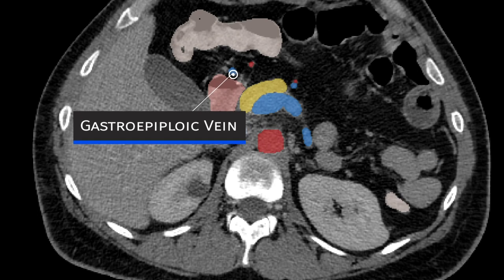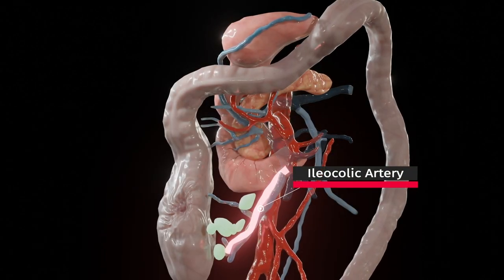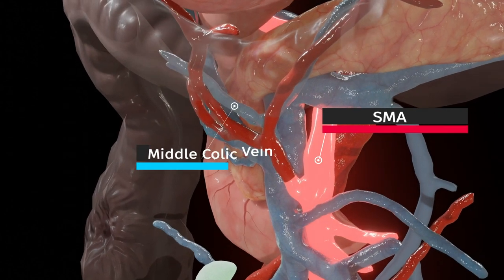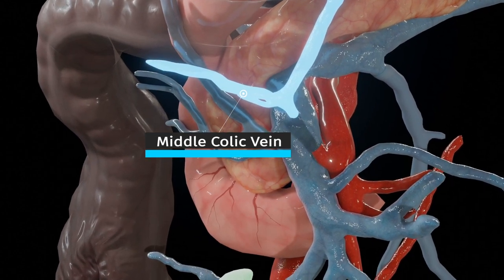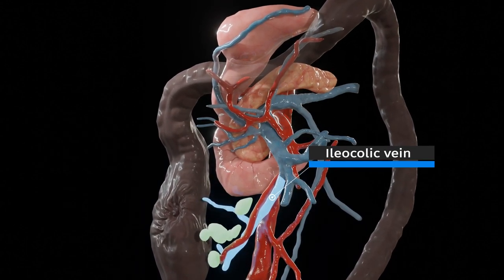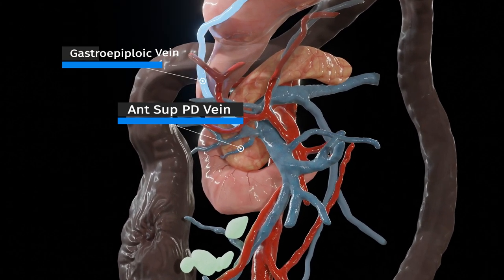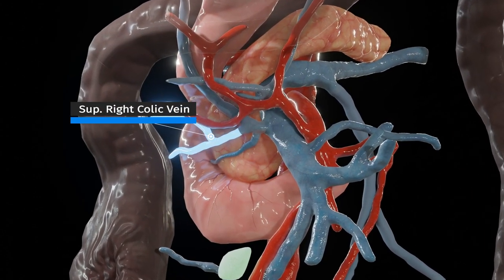However, even with such a systematic approach, extracting the 3D relationship of the mesenteric vessels can be challenging even for an experienced surgeon. 3D reconstructions derived from patient imaging may therefore be a useful adjunct to the preoperative planning process. Patient-specific models are generated by segmentation of the staging portovenous CT scan. Segmentation refers to the process of applying labels to specific pixels on each imaging slice to designate a specific anatomical structure. We can subsequently extract the 3D geometry as a polygon surface mesh.